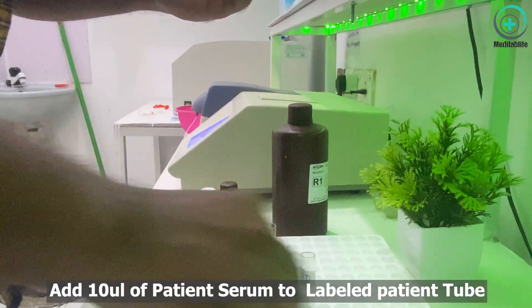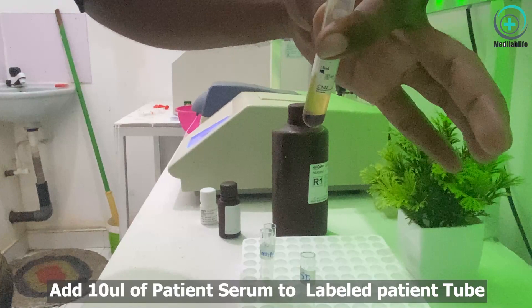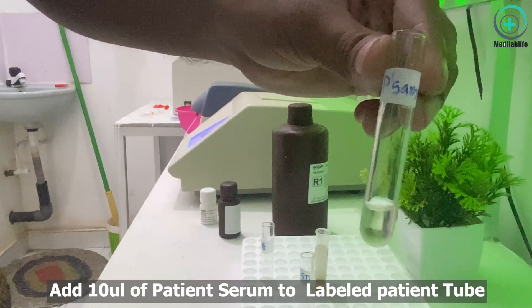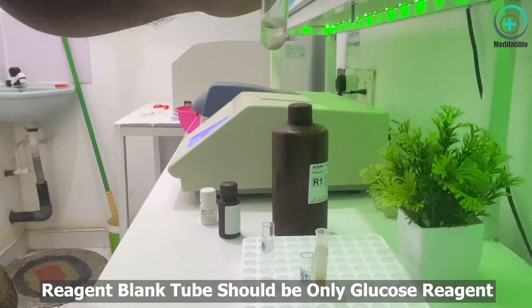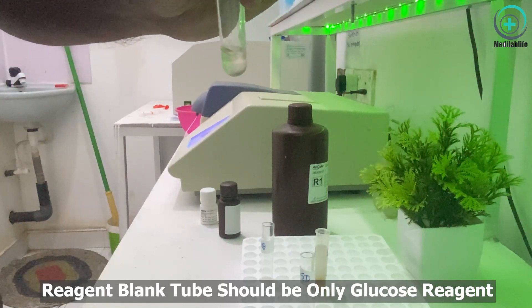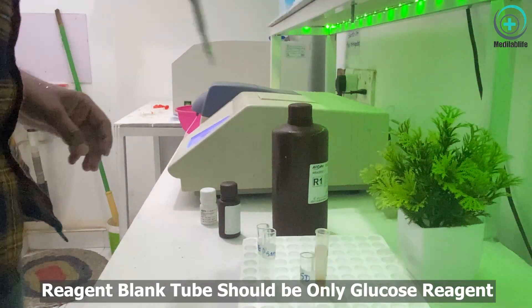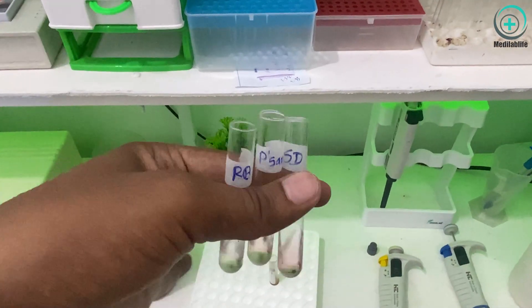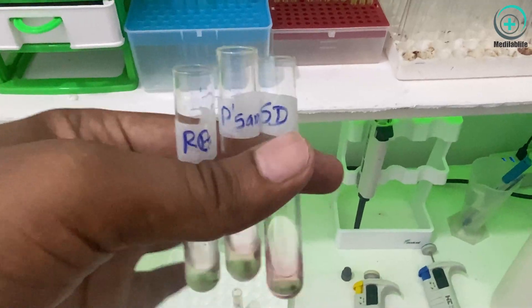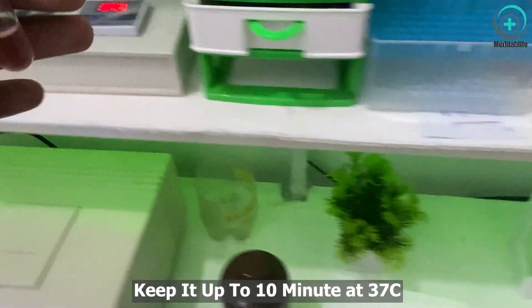In this video, we did not add any sample or any other reagent to our reagent blank — it should be only glucose reagent. Also, all three tubes should be kept for 10 minutes at 37 degrees Celsius.